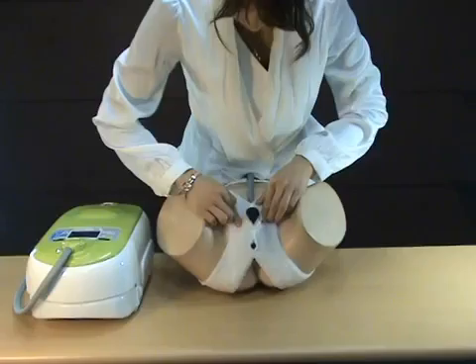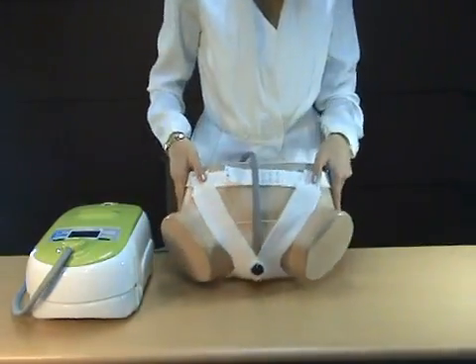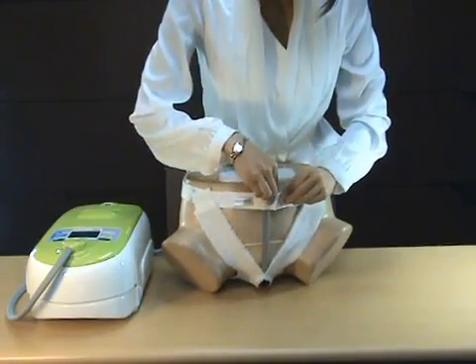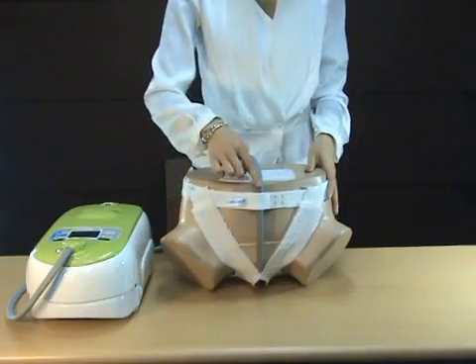The collection hose fastens to the waist belt. For additional comfort and convenience, the user can wear a girdle.